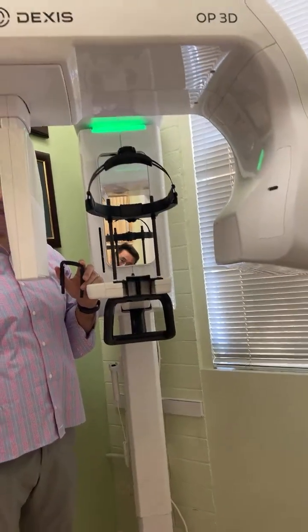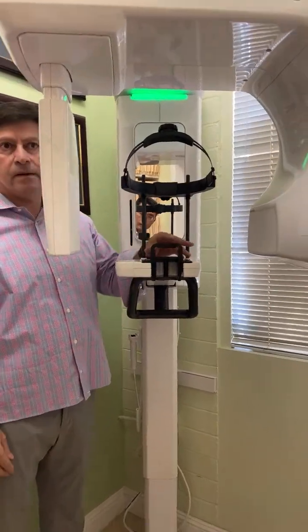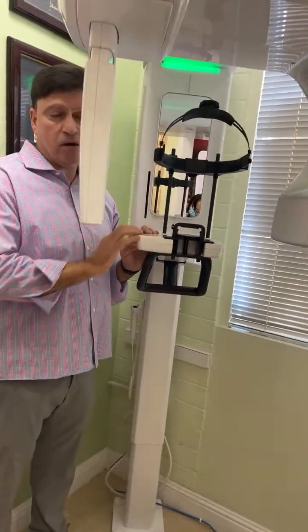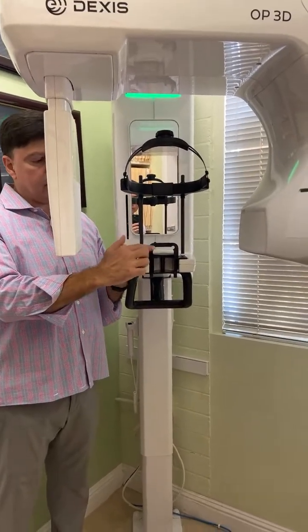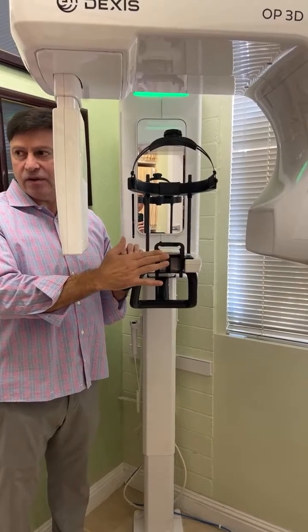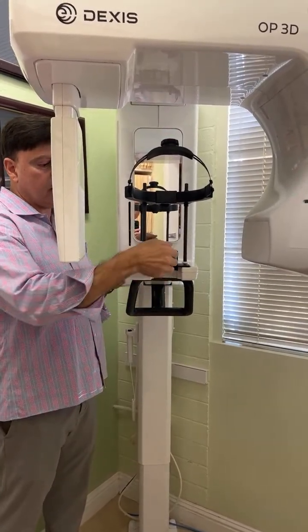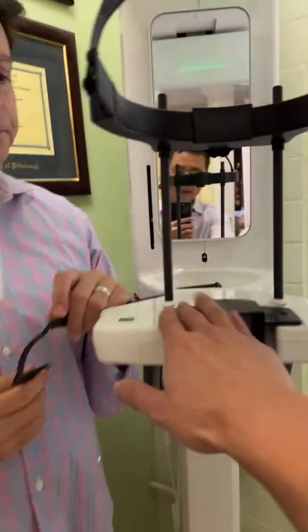So that is the maxilla of a CT. What do they call this one? Chin support. Okay? So if you try to take a pano like this, it's going to tell you chin support in the wrong position. If you try to take a mandibular CT, wrong position. You try to take upper and lower CT, wrong position. So the only time is when you're in the maxilla. So this is maxillary. Yes.